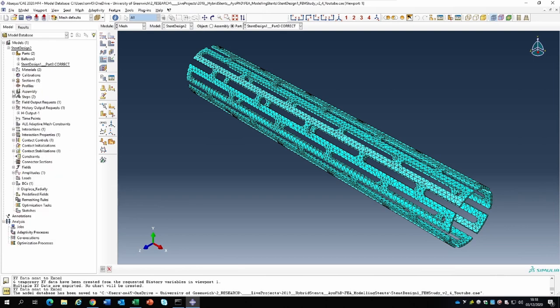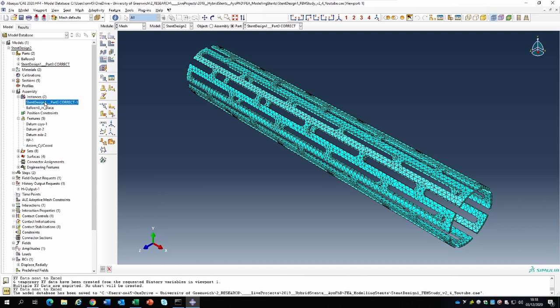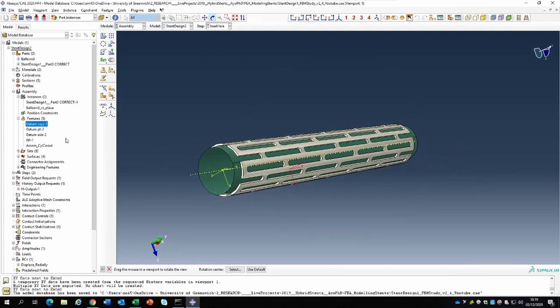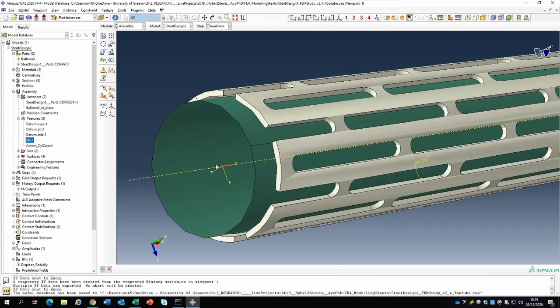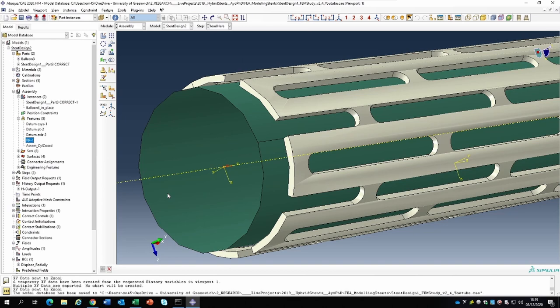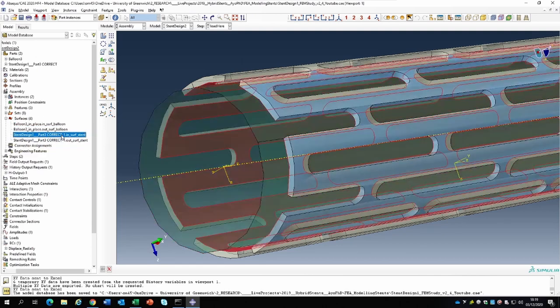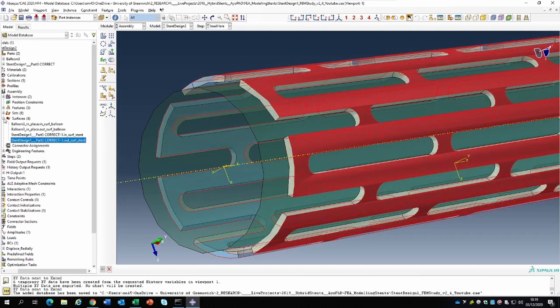We created two instances - one for the stent and another for the balloon within the assembly module. There are certain features we created to help with the analysis. There is the cylindrical Cartesian coordinate system which is the default in Abaqus. We also created some reference points, a reference axis, and a reference point right in the middle to help identify the center and position the stent. Most importantly, we created an assembly cylindrical coordinate system to impose loading on the structure. We created surfaces as well: the inside and outside surface of the balloon, and the inside and outside surface of the stent.